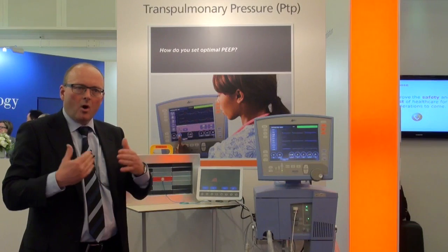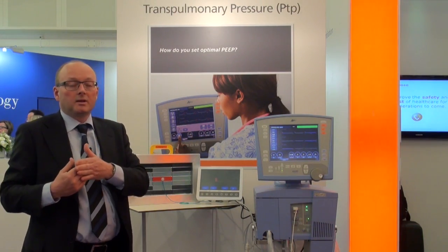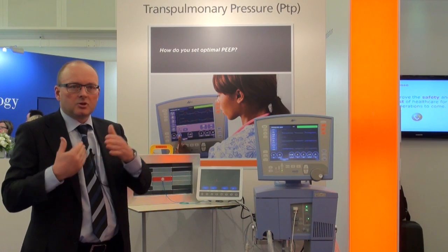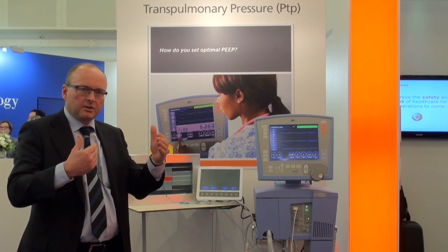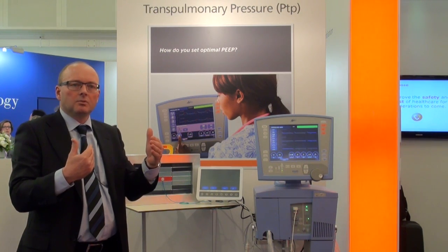There is no way that airway pressure is going to tell you that, because airway pressure does not tell you the transmural pressure or the pressure over the alveolar wall. The only way to do that is to measure pleural pressure and airway pressure. Now it's very difficult in humans to measure pleural pressure, but esophageal pressure is an extremely good surrogate for that.